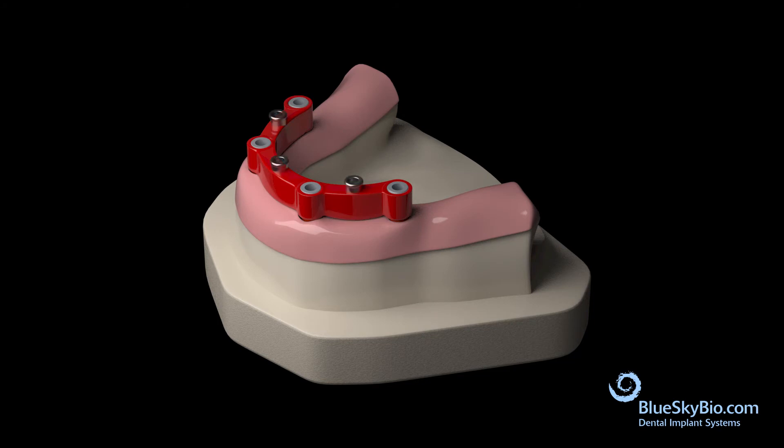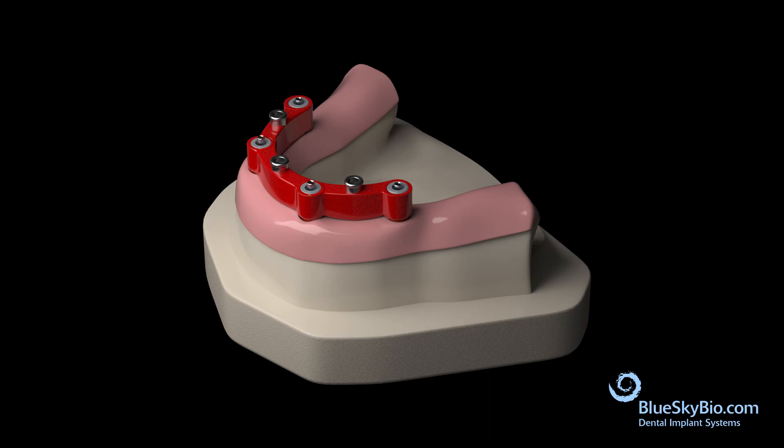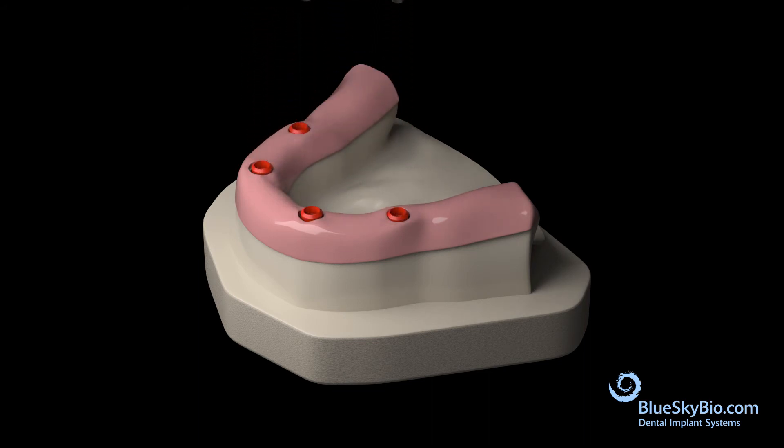Wax the locators into the bar resin. Remove the resin bar from the stone model and cast.